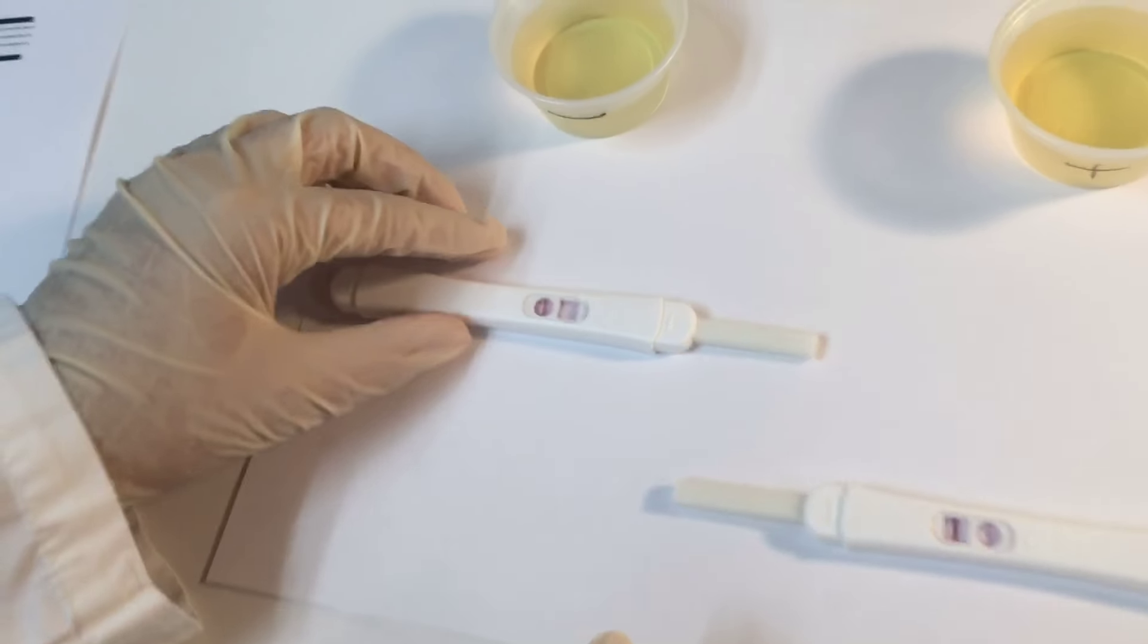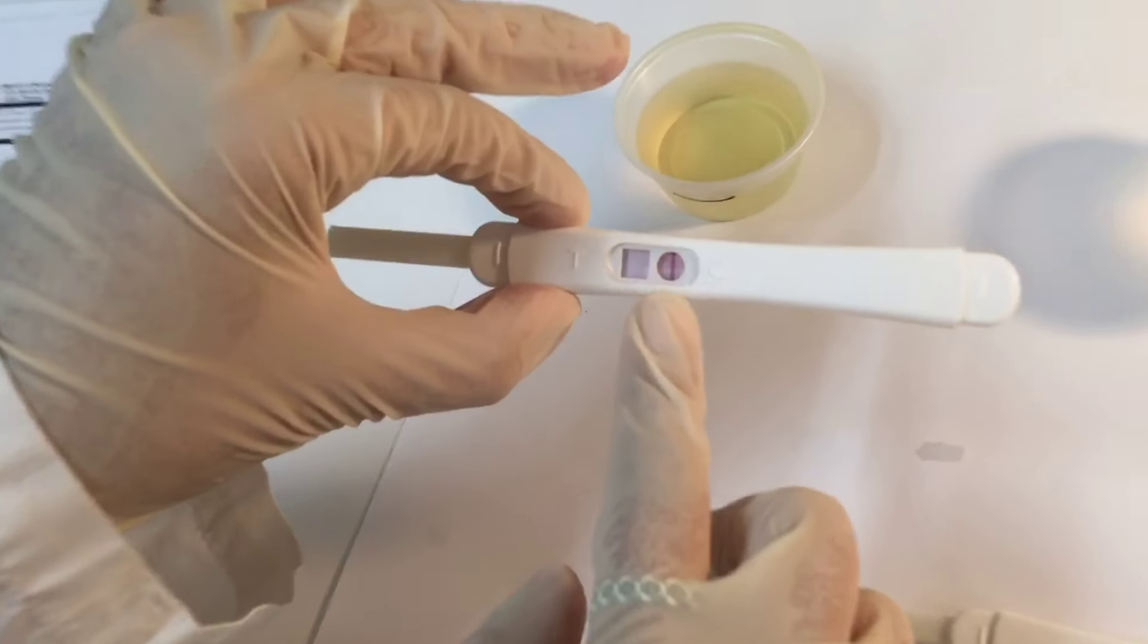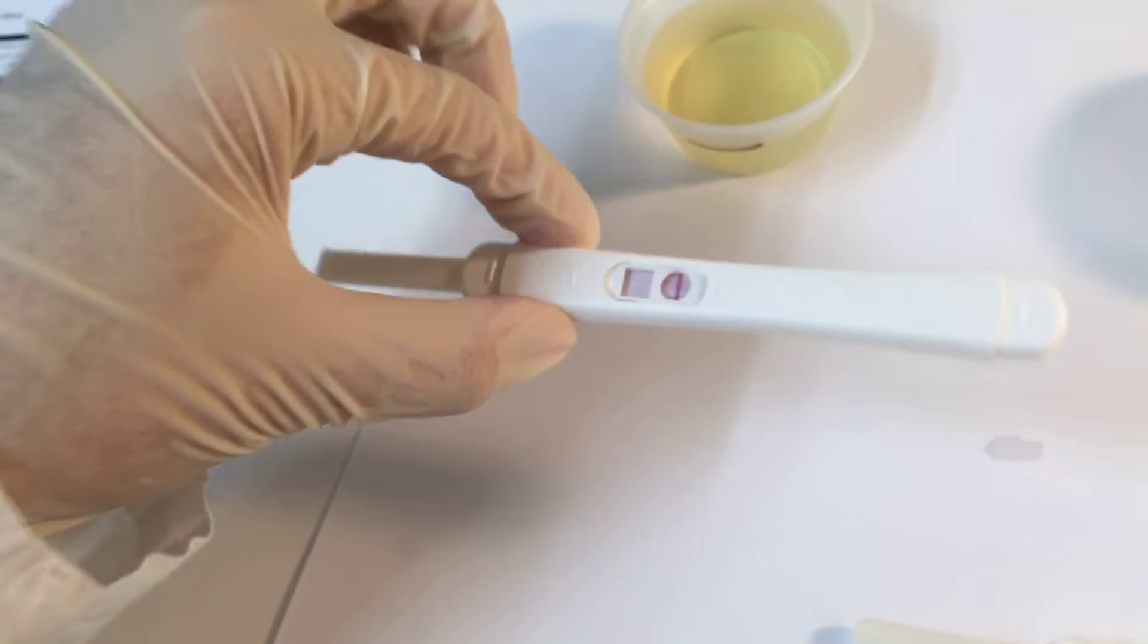So this is the negative one. As we can see, we only have the control line here, and we don't have the line here. So this is negative.